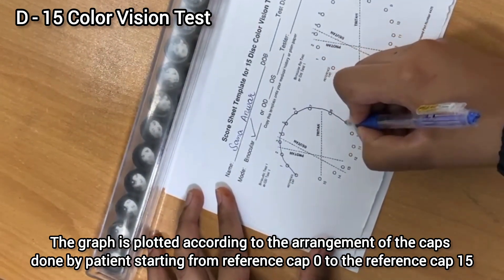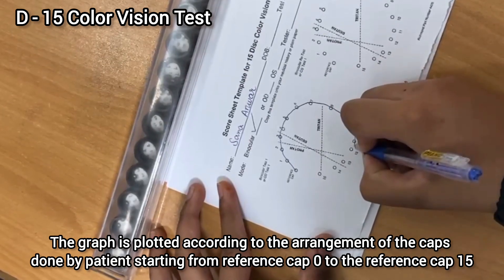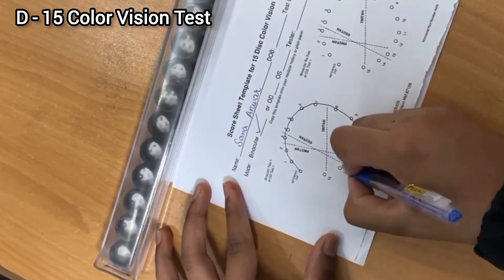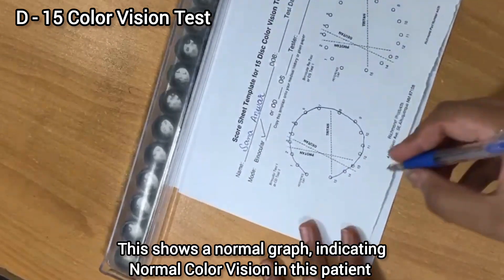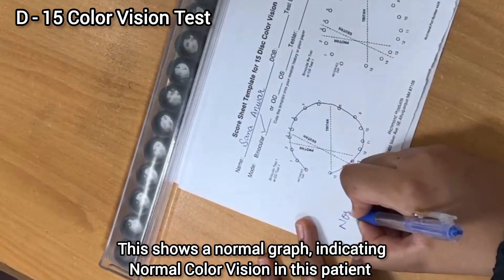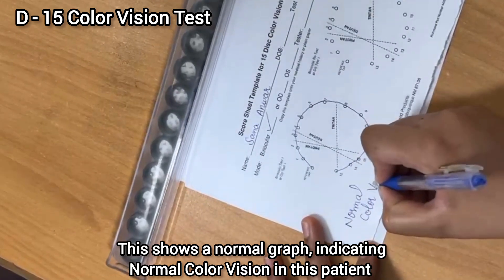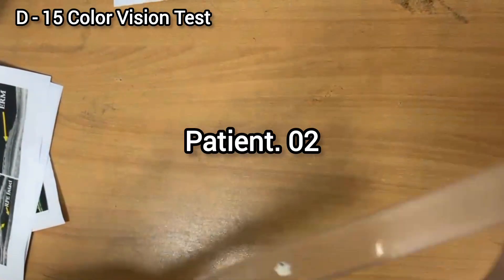If the patient has placed cap one after zero, you just have to join zero and one on the graph. Similarly, all the caps are plotted in the same way. This patient has normal color vision because the graph is very smooth and in sequence.